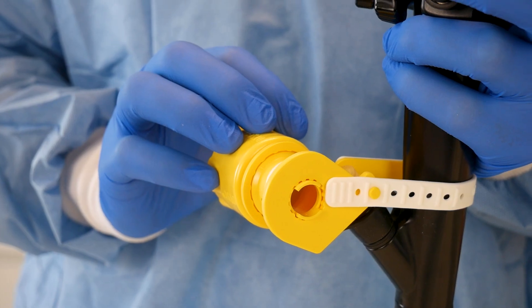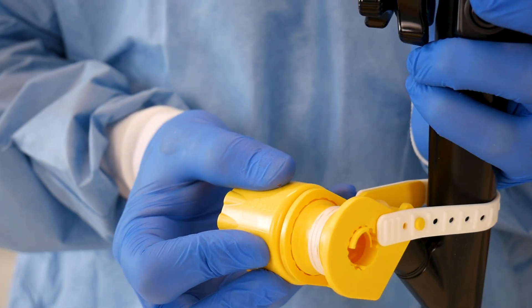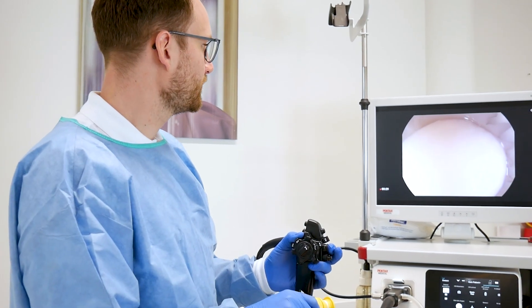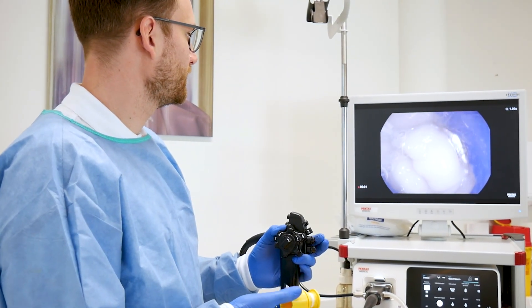Turn the hand wheel as quickly as possible to safely release the clip. The blue ring provides immediate visual confirmation that the OTSC neoclip has been deployed.